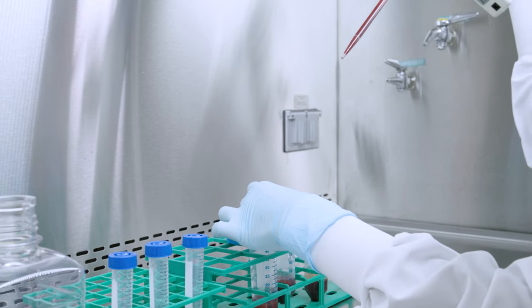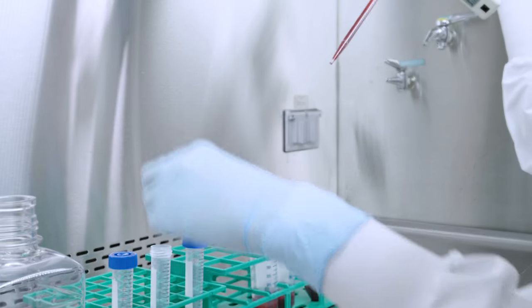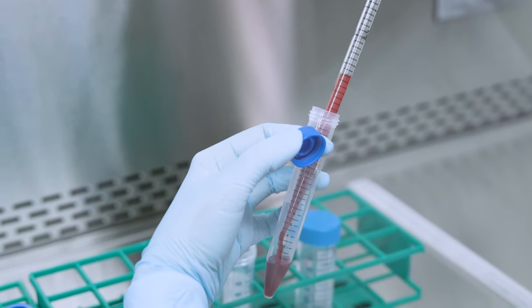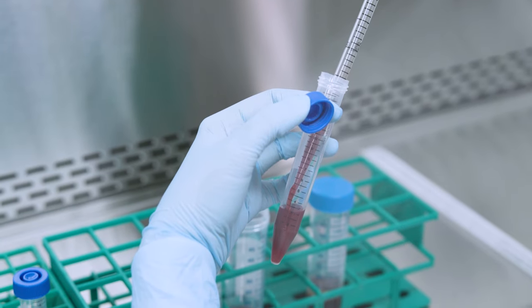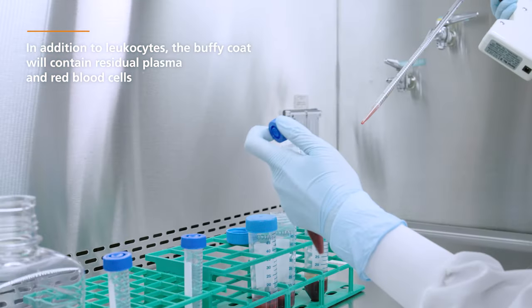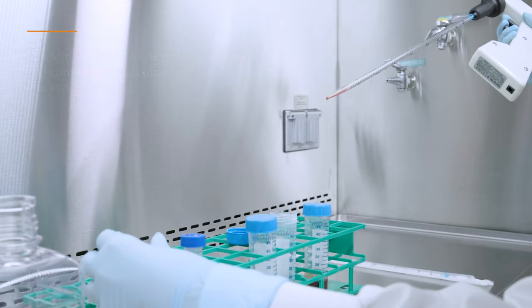The goal is to concentrate the leukocytes approximately 5-fold. For example, you can collect 4 mL of Buffy Coat when using a 20 mL starting blood volume. Note that in addition to leukocytes, the Buffy Coat will contain residual plasma and red blood cells.